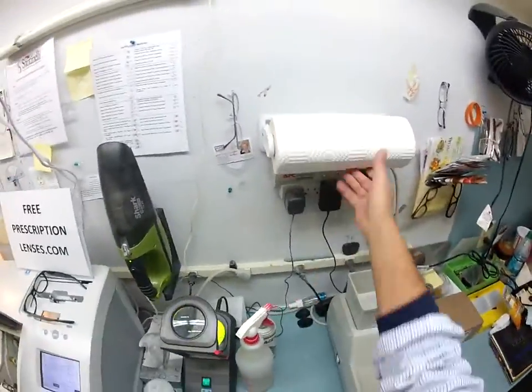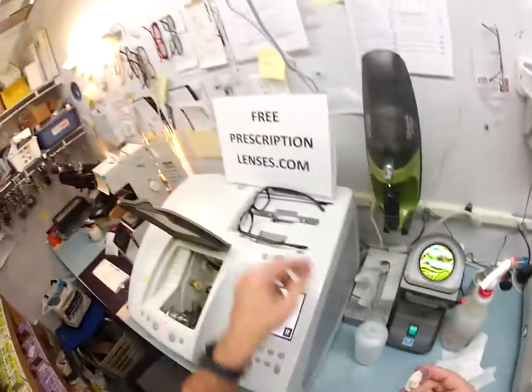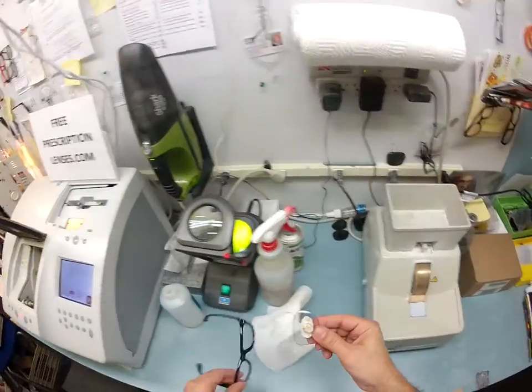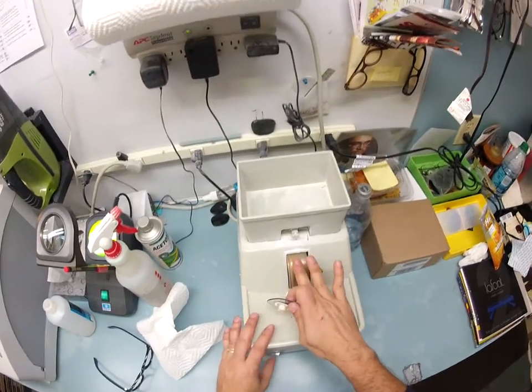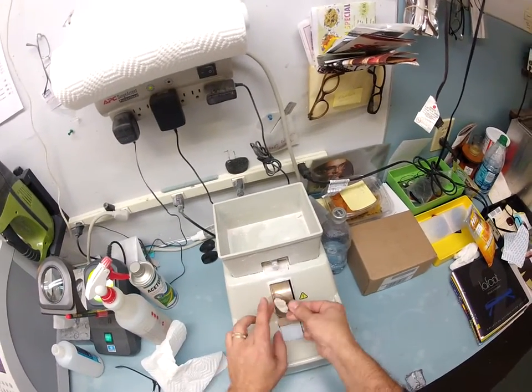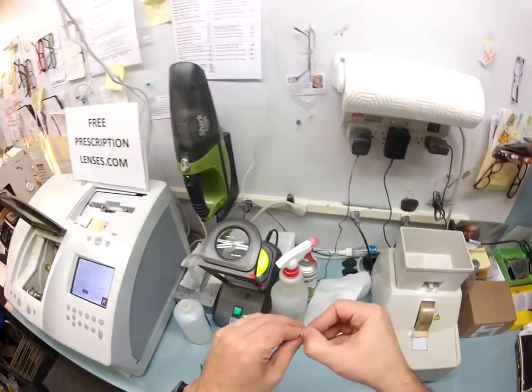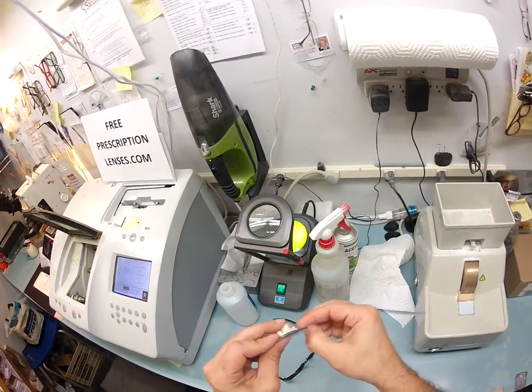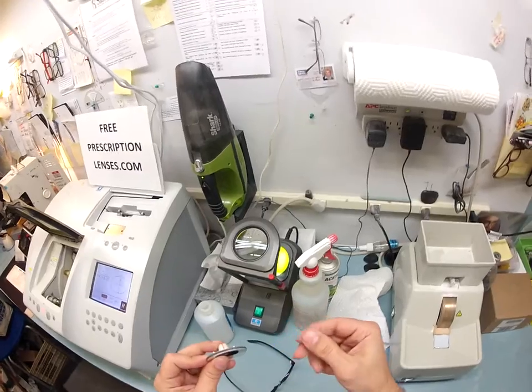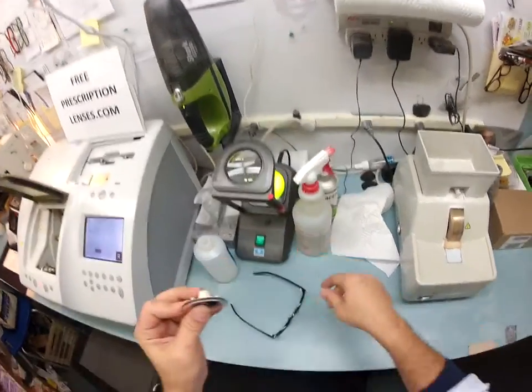This is the shape now. I do want to dry the lens off so it's not slippery. It still has a little bit of rough edges, so I'm going to use my handstone, which is completely flat — it just works on friction. I'm going to go all the way around the edge of the lens to take off any rough edges. If you can see this white powdery substance on the lens, that is called schwarf — that is optical sawdust. This is my trademark move: I use my thumbnail, which has a V-shaped bevel worn into it because I do this all day long. I wipe off all the schwarf onto the counter and then from the counter onto the floor.